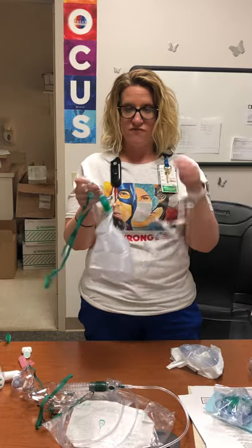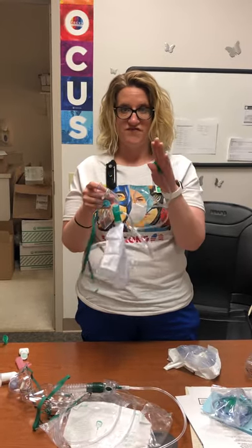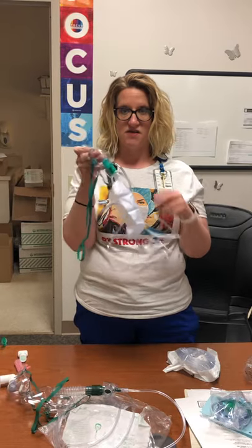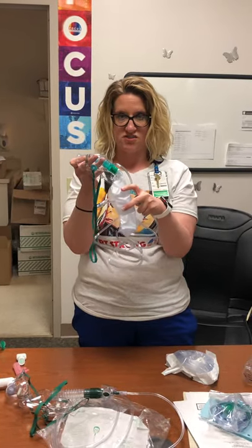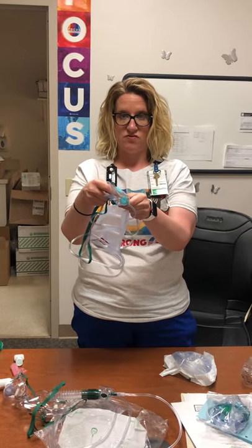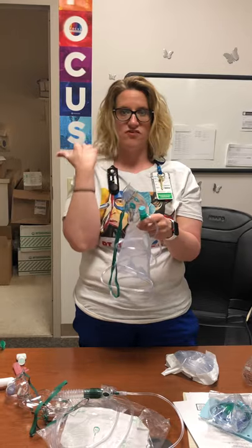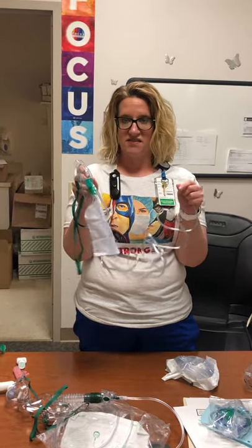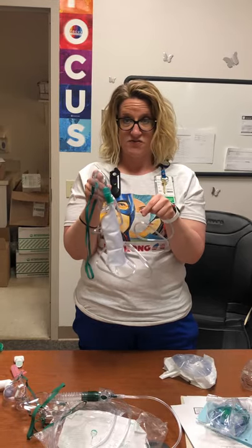It doesn't matter if you're on 6, 7, 8, 10, or 15 liters — it's 100% oxygen coming through this mask. The reservoir bag fills up with concentrated 100% oxygen, and then it opens when the patient breathes through this little valve. So they get 100% oxygen every single time.